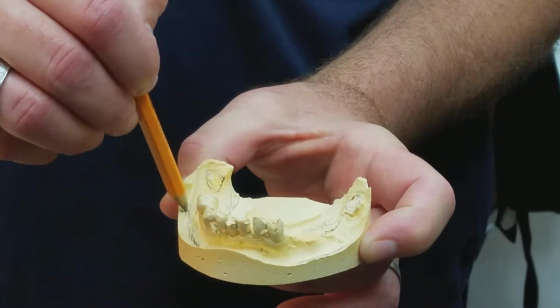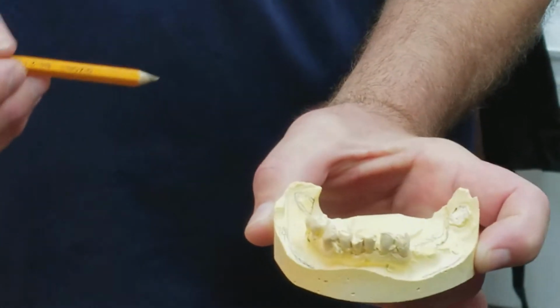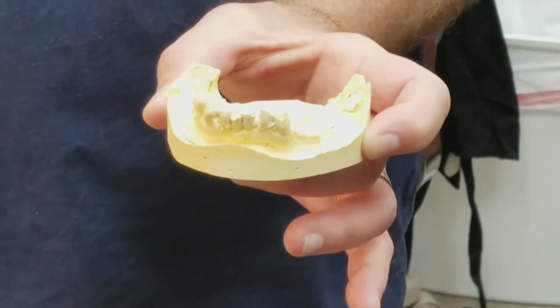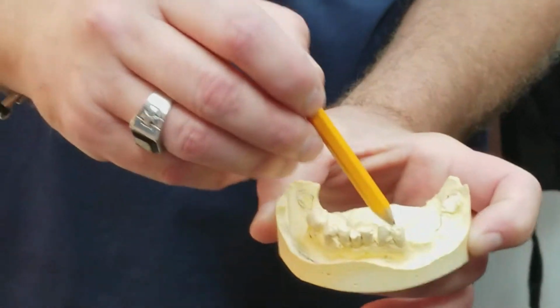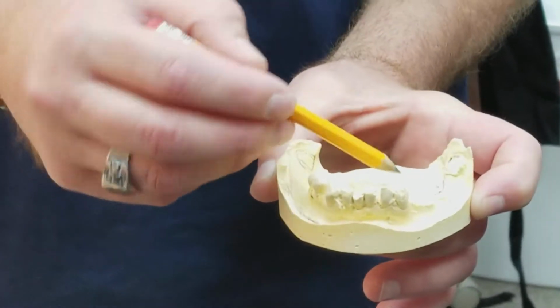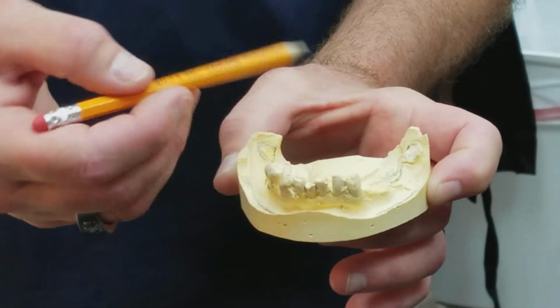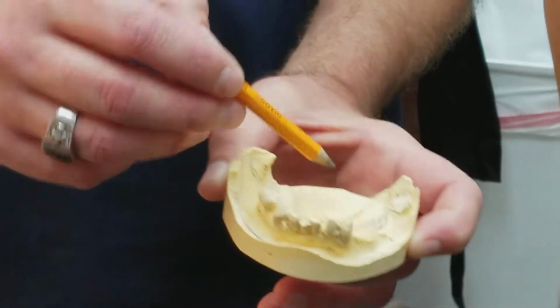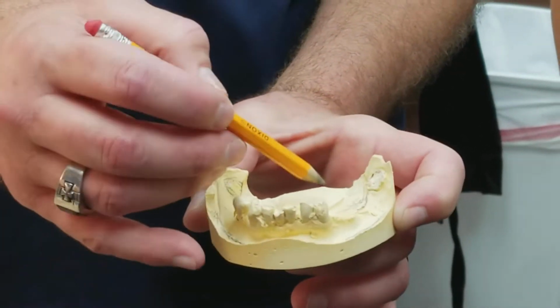I've been doing it a long time, but I can just draw like that, and that's how much we need right there for any kind of removable partial denture immediate case. Basically, the same way in here. That's kind of shy, so it's going to be kind of hard to get that. I could fake it, I have before, but it's very hard to do. So to try to make something fit like that is very impossible.